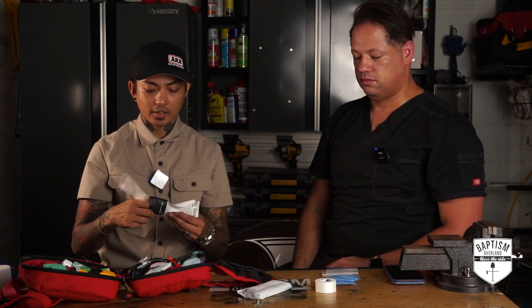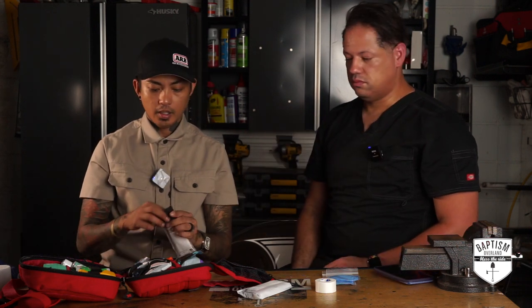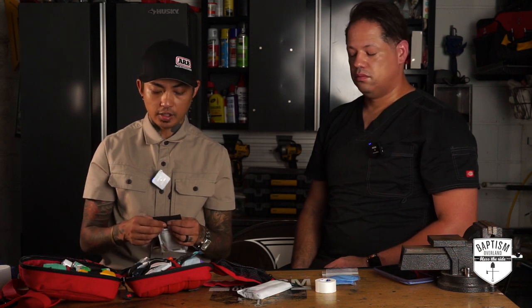I've bought a lot of kits from Amazon — super cheap, ten dollars for a first aid kit. I have one right here actually. They're just run of the mill. My wife would look at those kits sometimes and say we could have just gone to the nearest grocery store and made this ourselves. MyMedic comes at a premium; their stuff is a lot higher quality. That's why I'm liking what I'm seeing — this is a great kit so far.